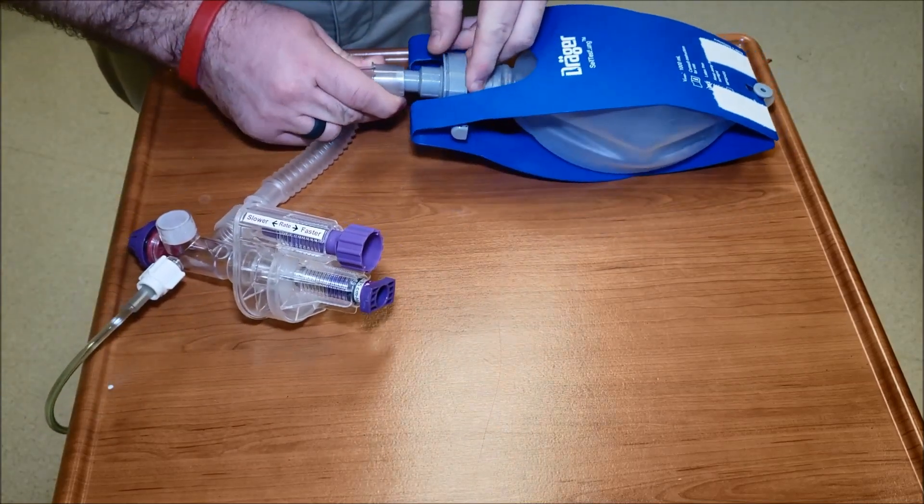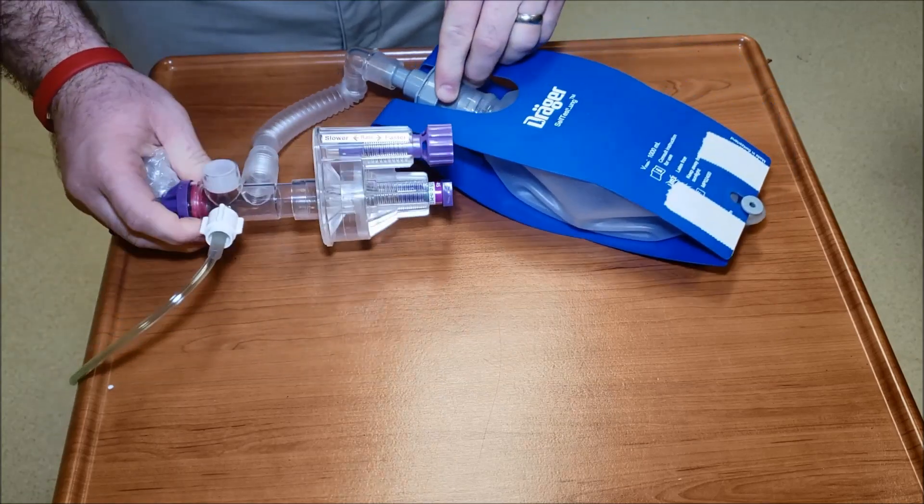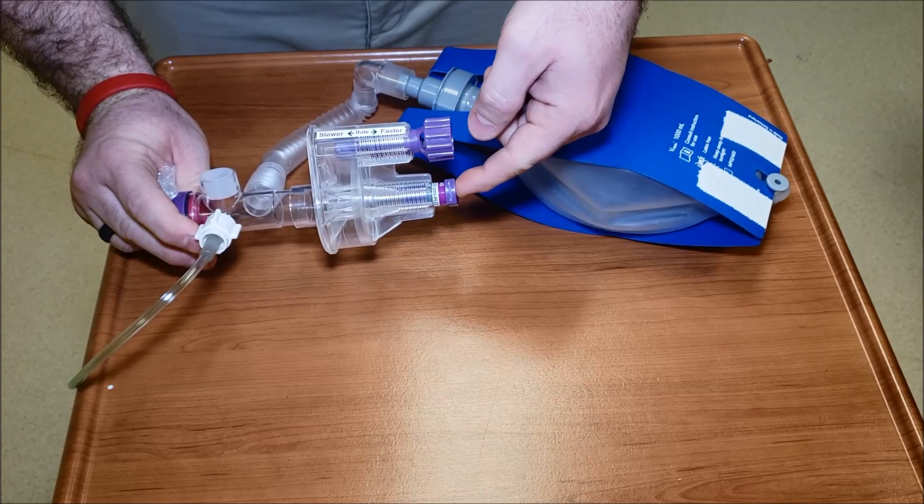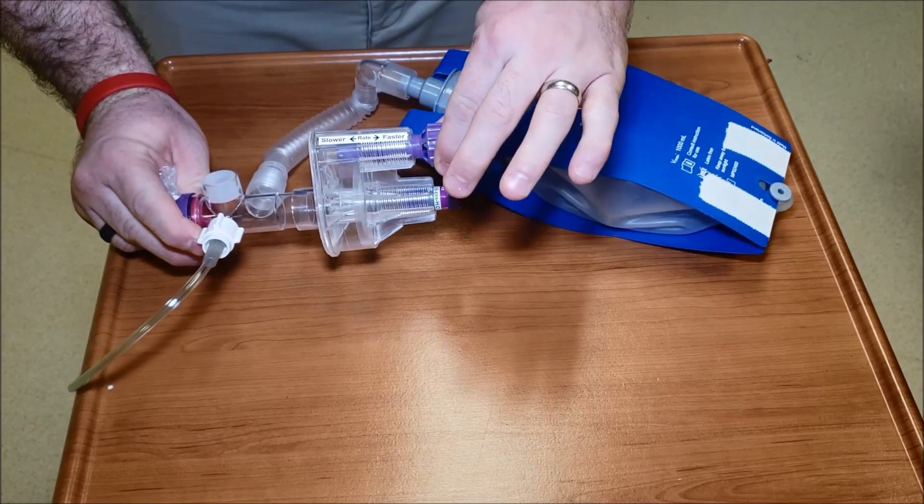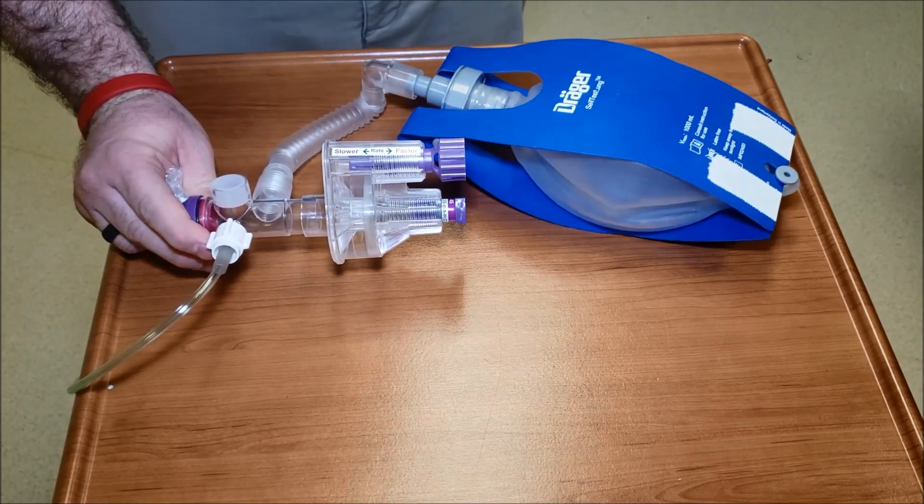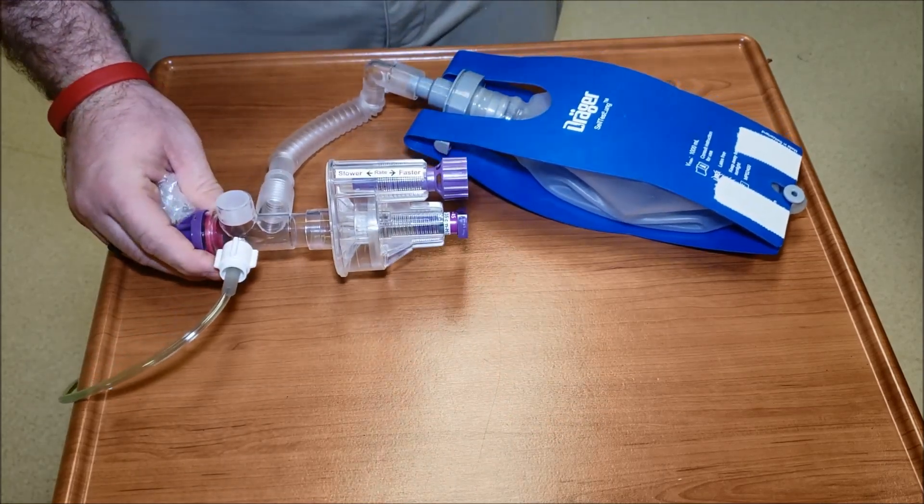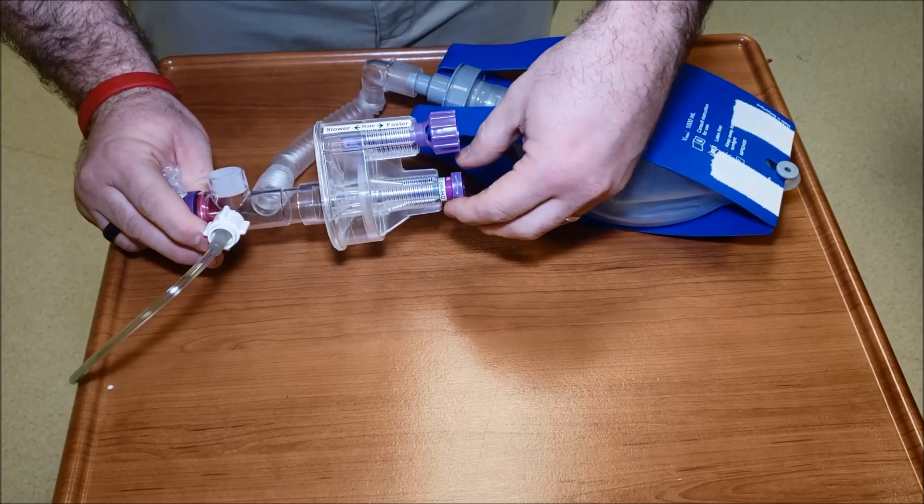The next thing you're going to look at is visible chest rise, because obviously this is all pressure regulated. Flow driven, pressure regulated for all you respiratory therapists out there - fun stuff from RT school. So flow's coming in, pressure's regulating it and regulating the rate right here. Remember this is at a hundred percent oxygen.